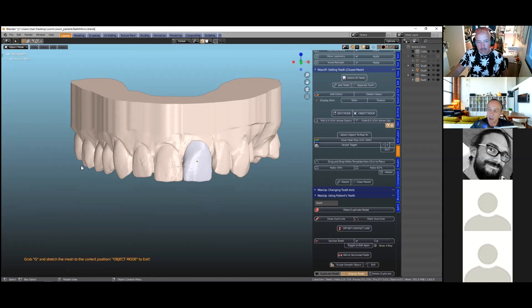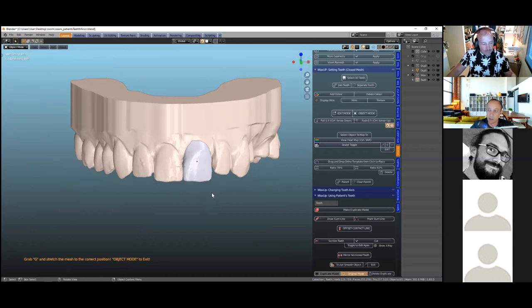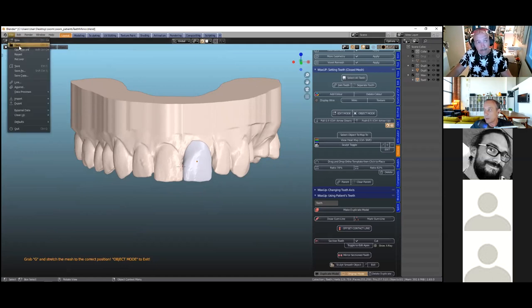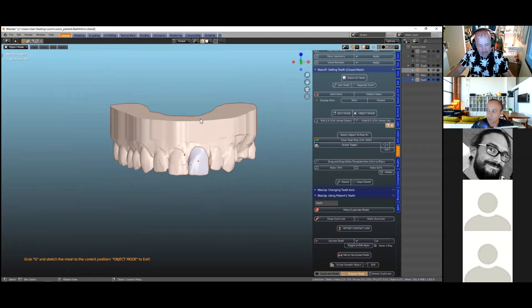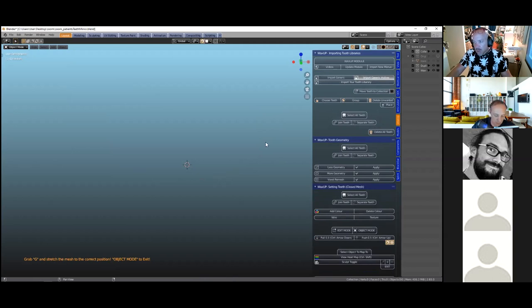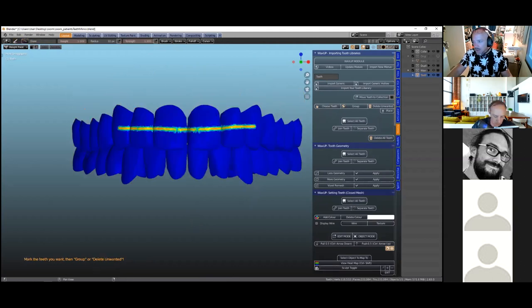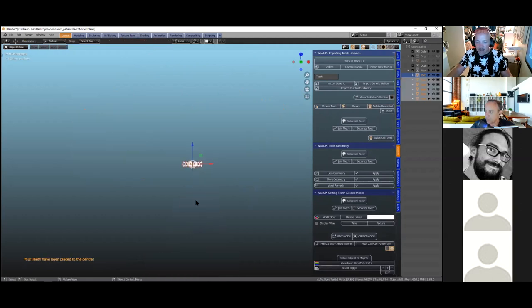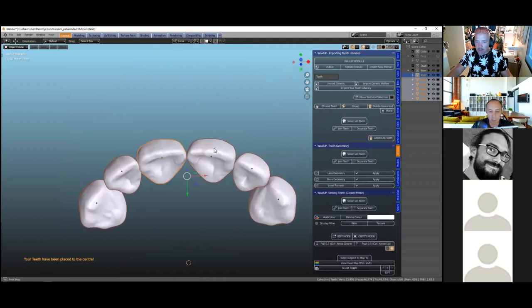With remaining time, let's demo the gum creation. I'll delete everything and import an open tooth library — 'import generic hollow'. Choose the six front teeth, delete unwanted, and place. All of these are hollow. If we want to close a tooth, go to 'pontic design' and click 'close tooth'. View from the top — it extrudes away from us. If you want to change to flat it changes at any stage. If you lose selection, click 'select apex' and then grab and change it however you want.